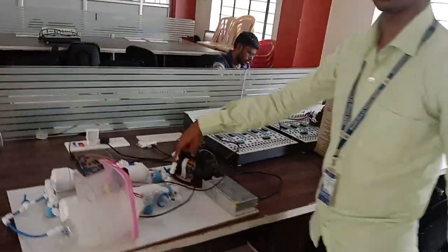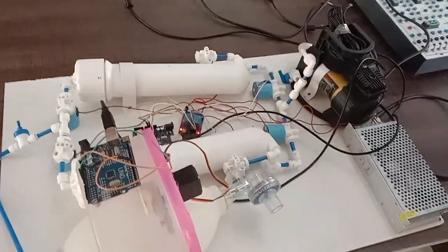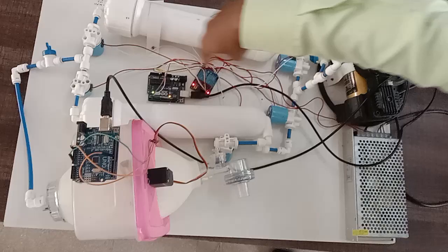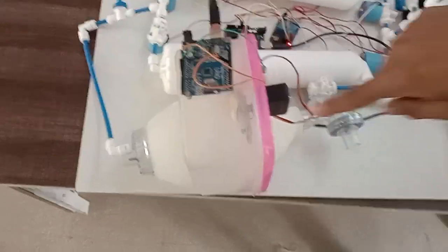Let me show you the top view of our project. This is the oxygen concentrator part and this is the ventilator part over here.